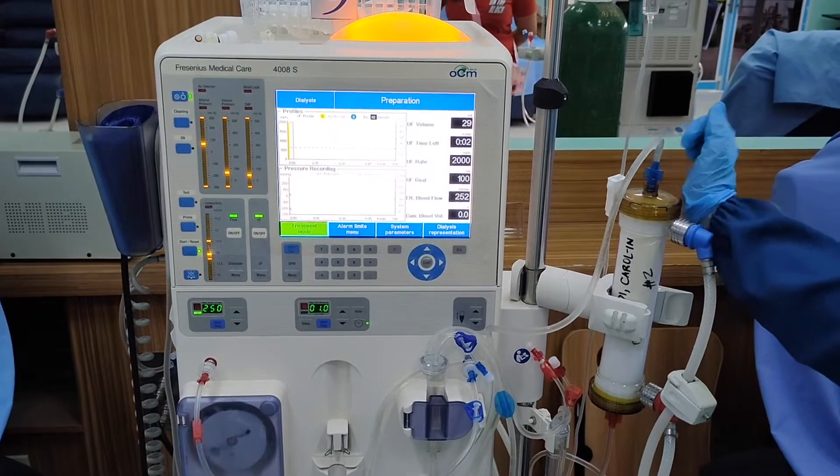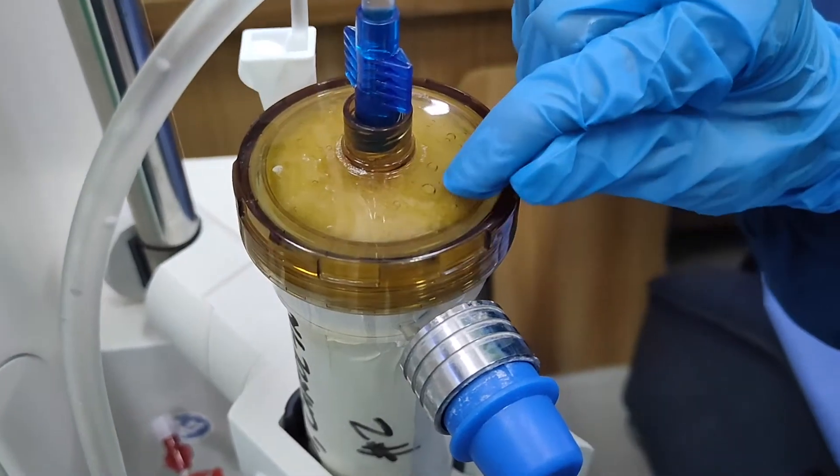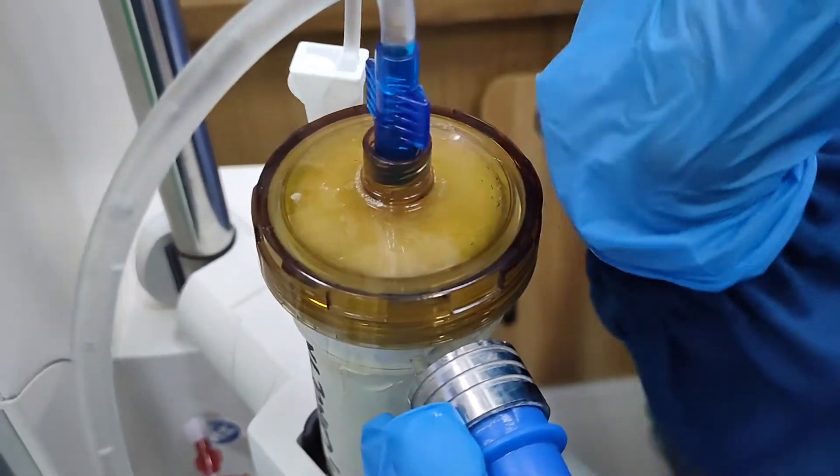Gently tap the dialyzer to expel air bubbles. If you look closely, you can see the air bubbles on the dialyzer.